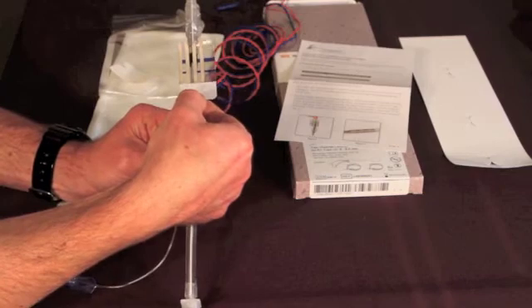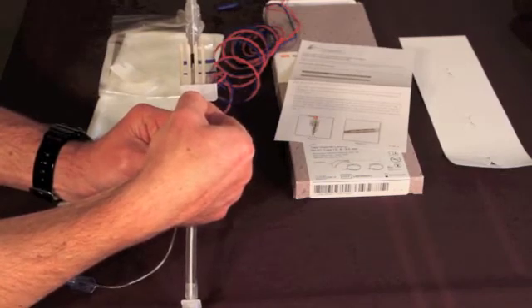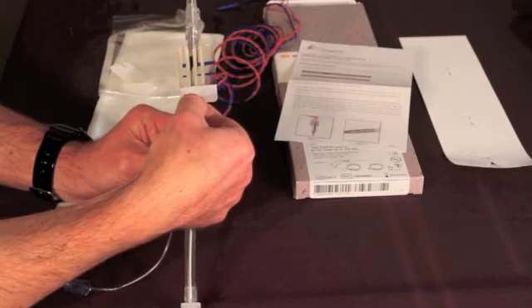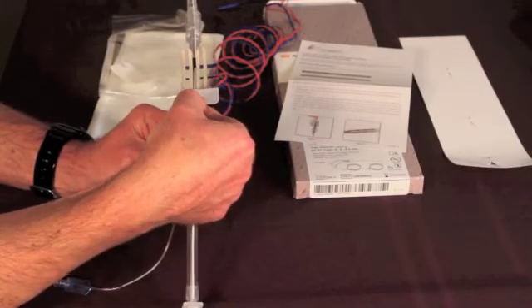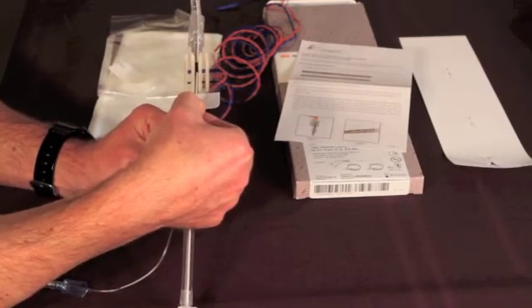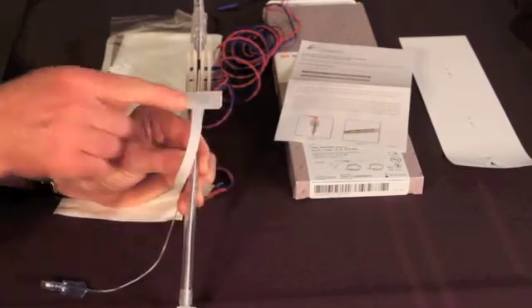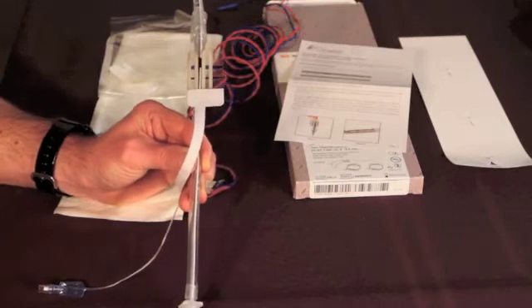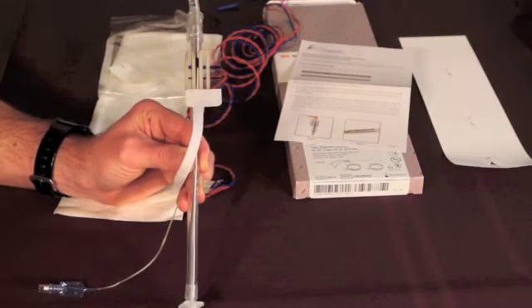Now I'm going to place the electrode right on the midline of the posterior portion of the tube, just below the cuff where the balloon meets the tube. Then what I'm going to do is press my finger along the bottom to make sure it's adhered to just the location that I've chosen.